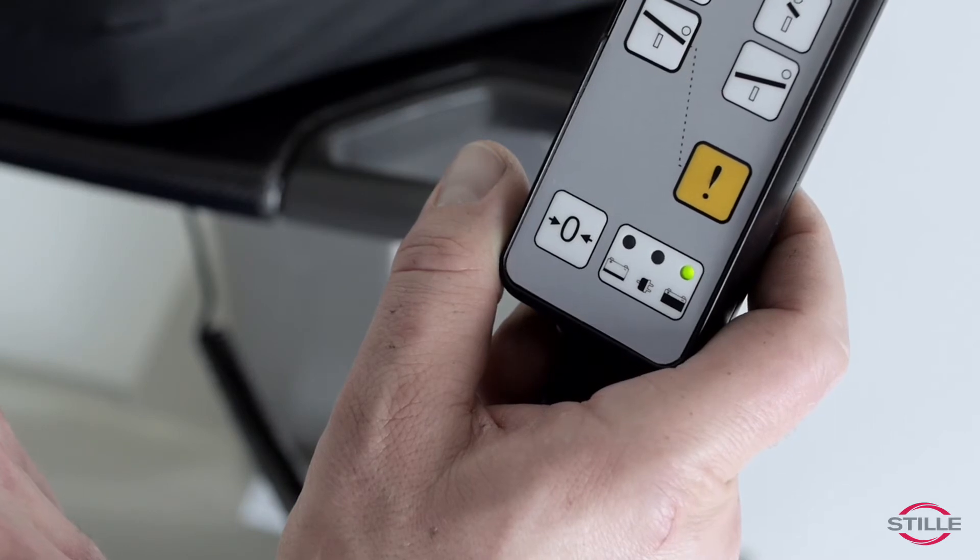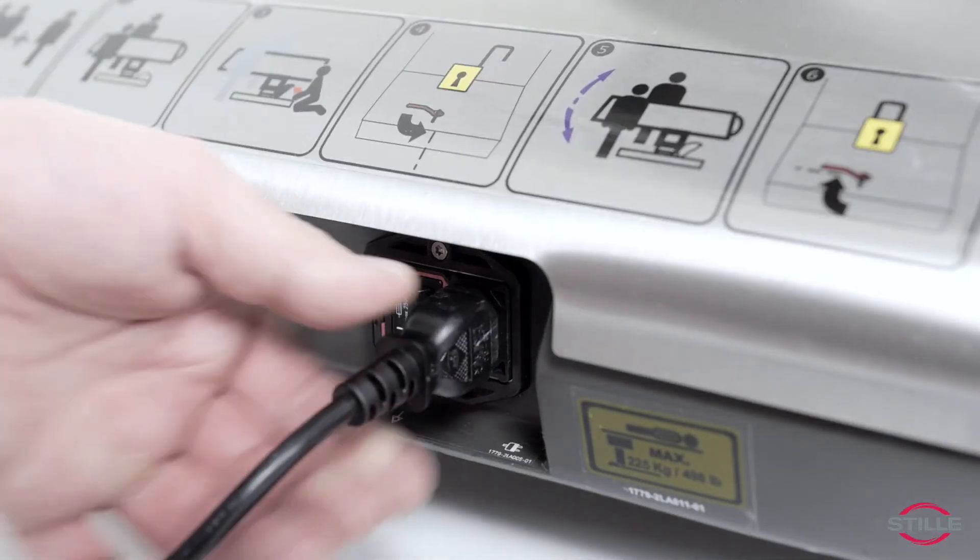The table is battery powered but it can also be powered from a wall outlet.